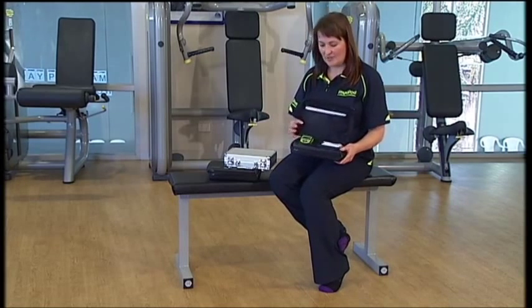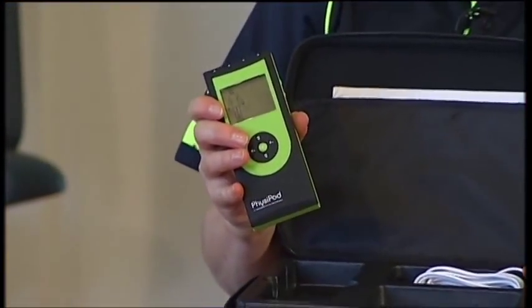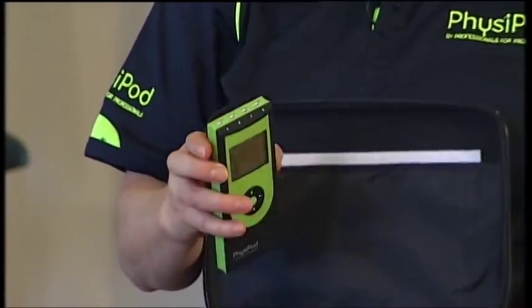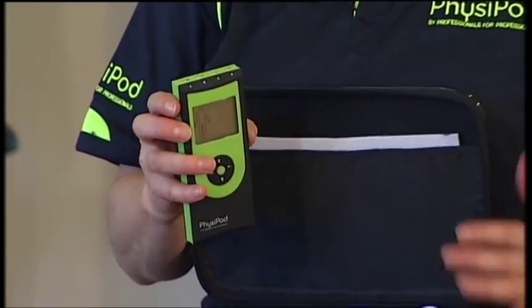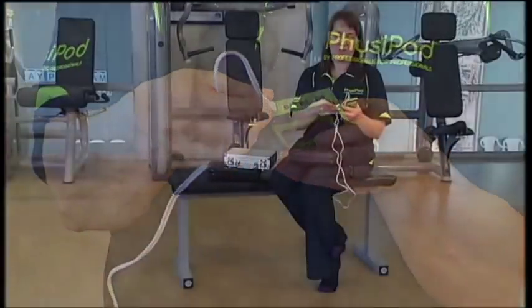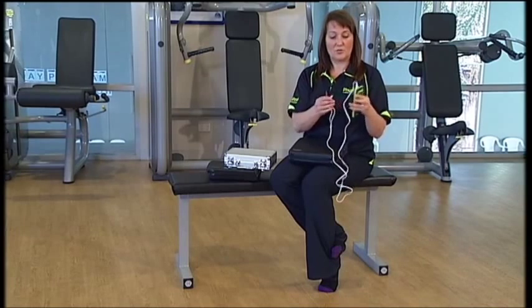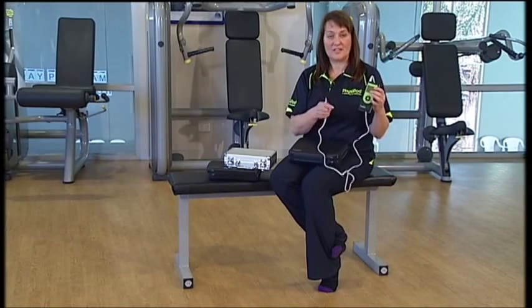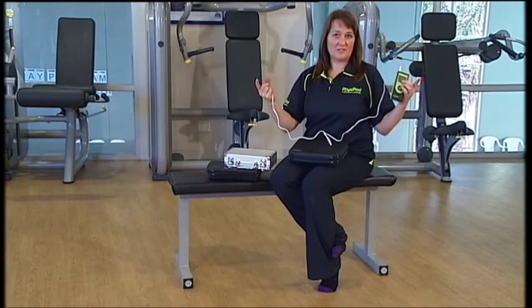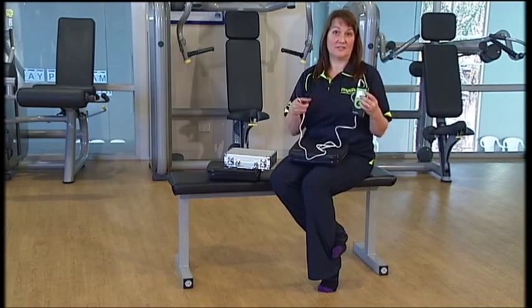So we have three models available. This is the Tu-4 — Tu simply stands for TENS unit — and as you can see at the top of it we have four ports. Off each port we would have a lead. We can do that with four leads, and at the end of each lead we have two split leads, so they go onto an electrode each. With this Tu-4 you can put up to eight pads on your body at any one time, allowing you to cover two different areas at the same time, or you can treat one large area with eight pads.